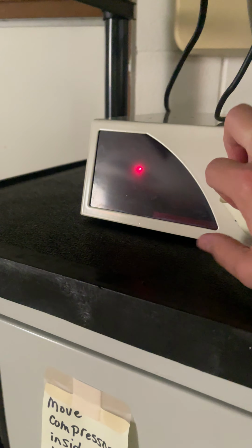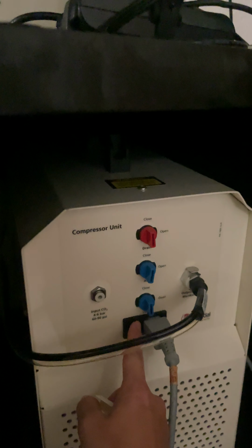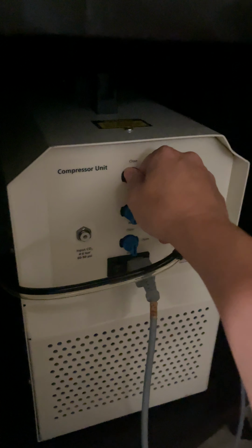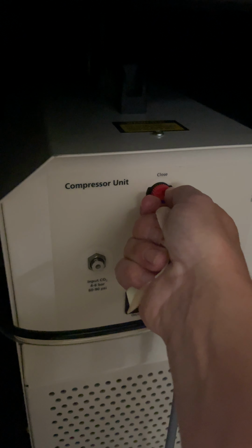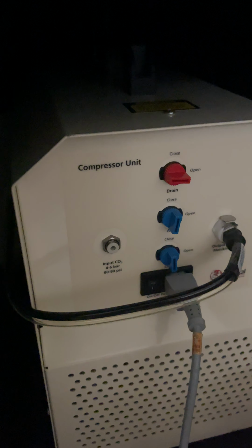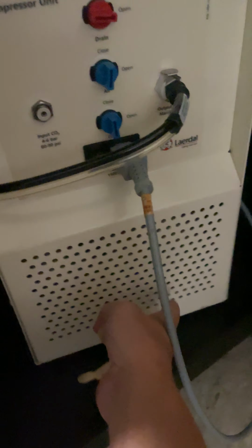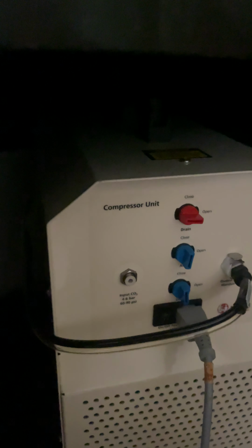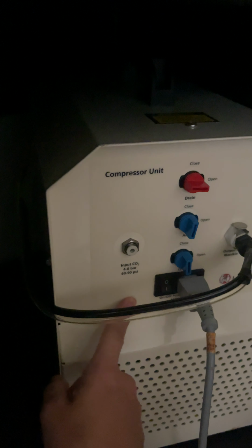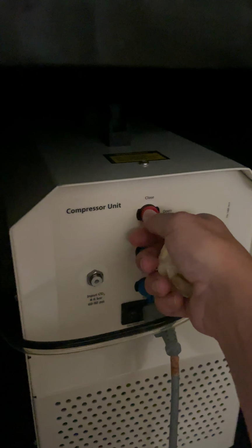You'll close that. The other thing that I need to show you, the light should be blinking to know that the link box is on and working. That's what connects the mannequin to the laptop. And then the compressor makes the chest rise and fall. It's closed, holding the air in right now. When you're done with it, you have to let the air out so it doesn't keep all the air in here. So you'll hear that kind of empty, and that's how you power it on and off.